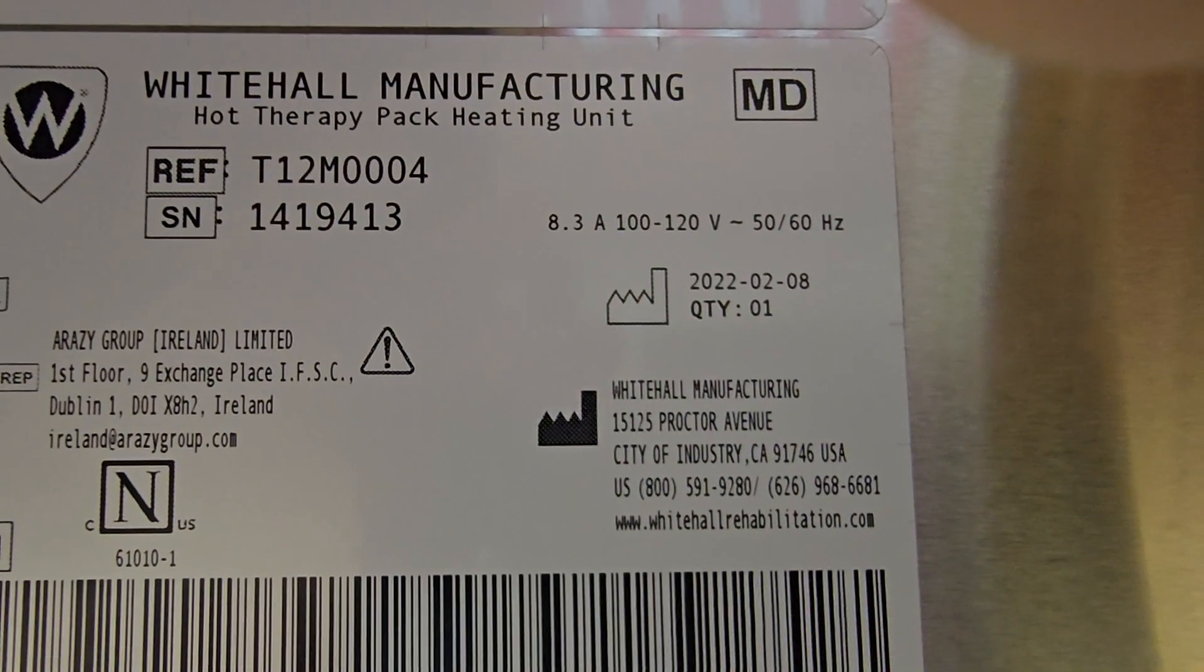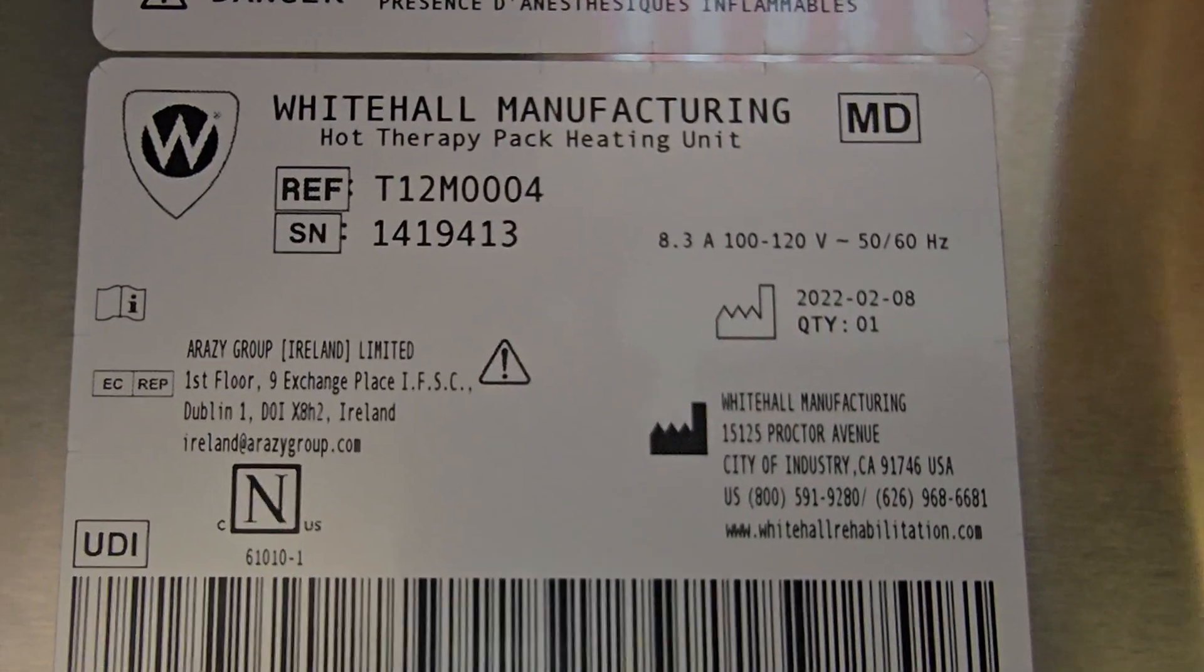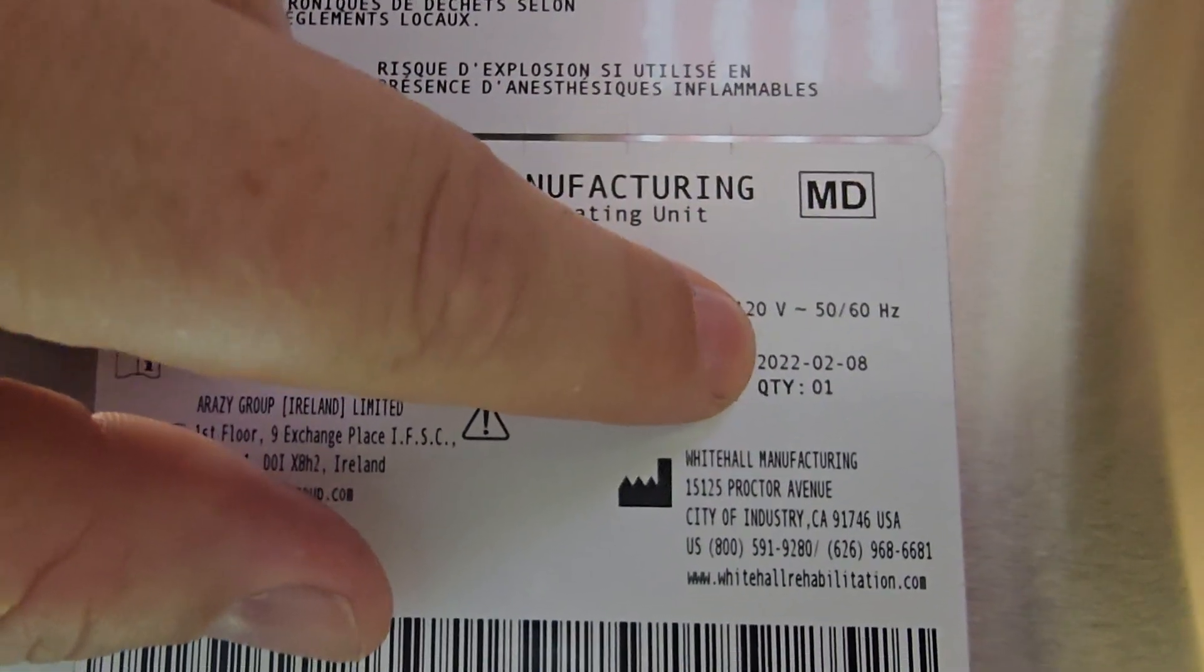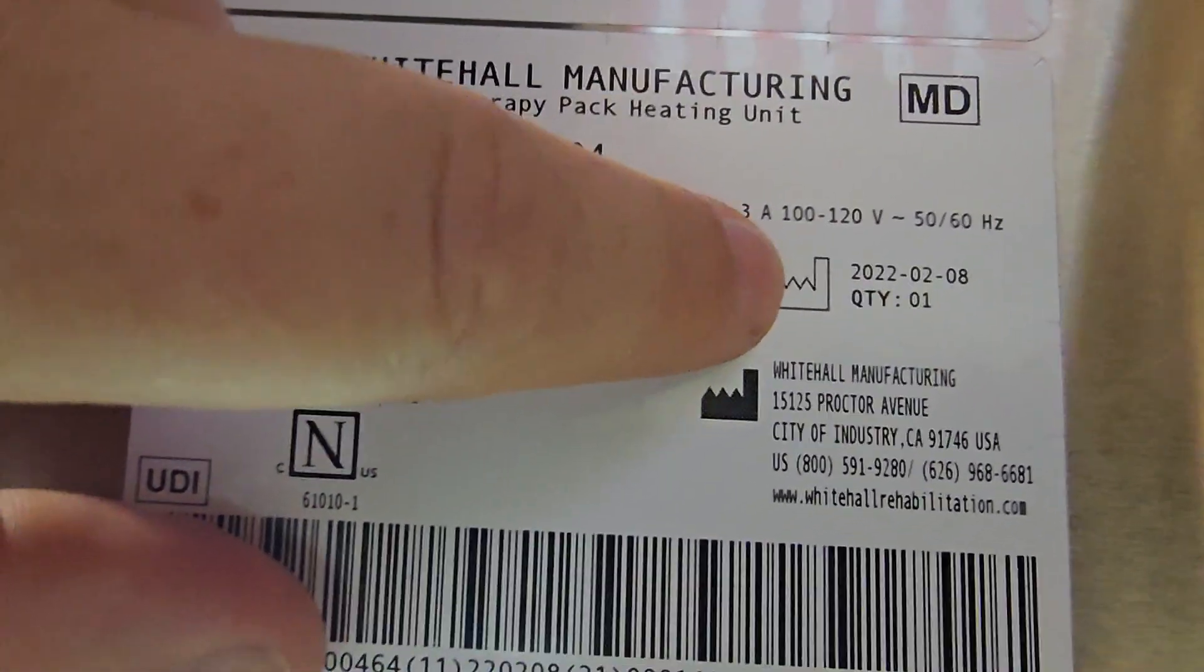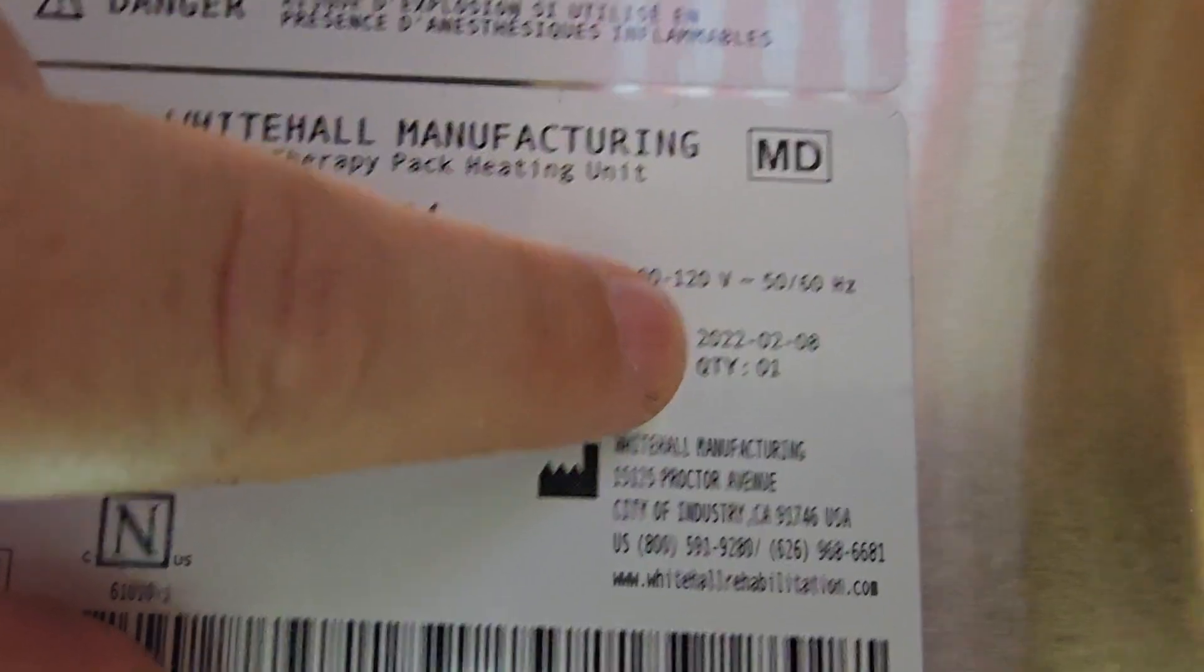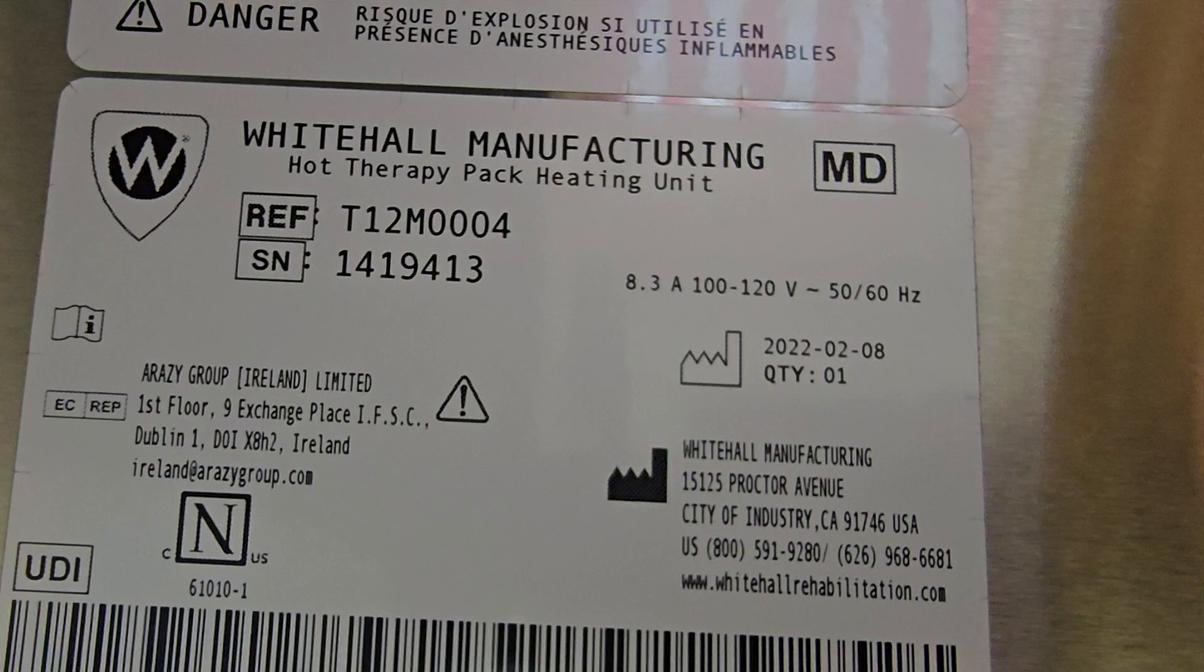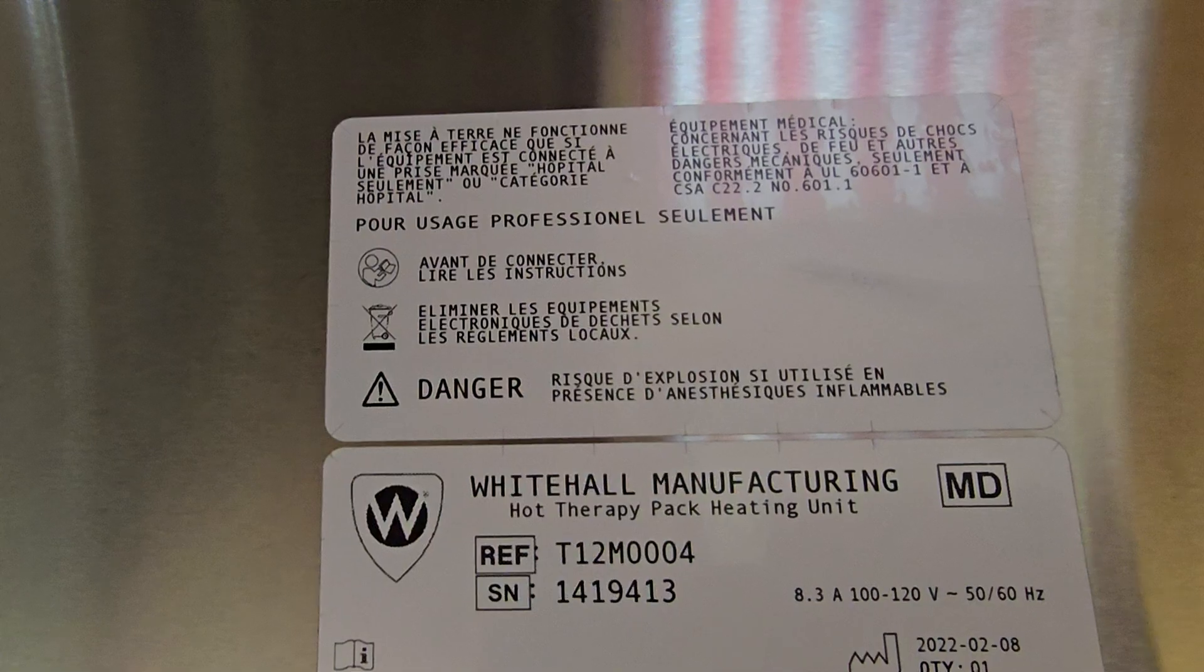Wow this one here wasn't manufactured that long ago. Wow that's interesting because I was recently told that this guy has no parts available. Now that could be wrong but the gentleman that told me that is very knowledgeable and that is scary that here it was manufactured only two years ago and there's no parts available and is discontinued for parts. Boy that'd be irritating. I hope that's not true guys.